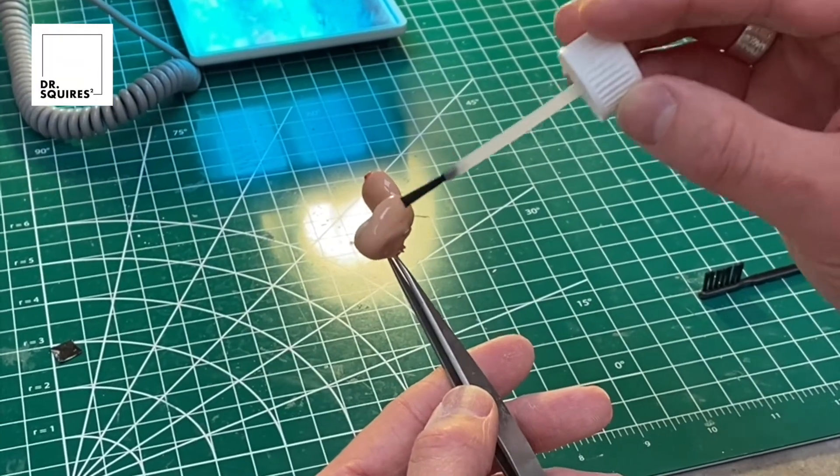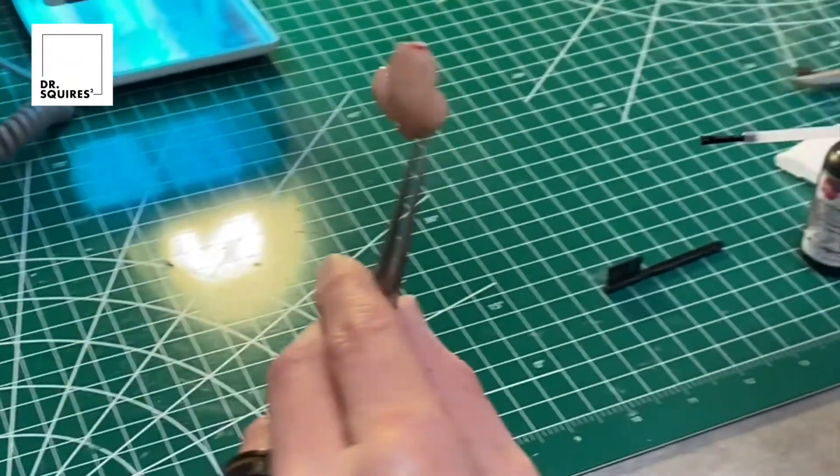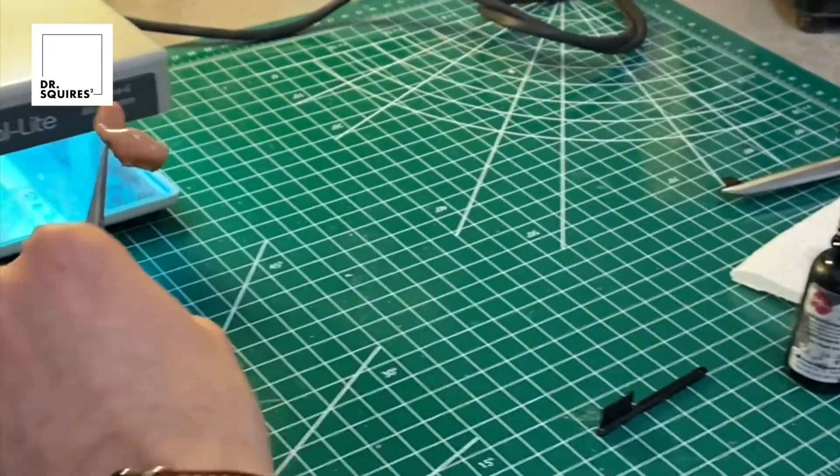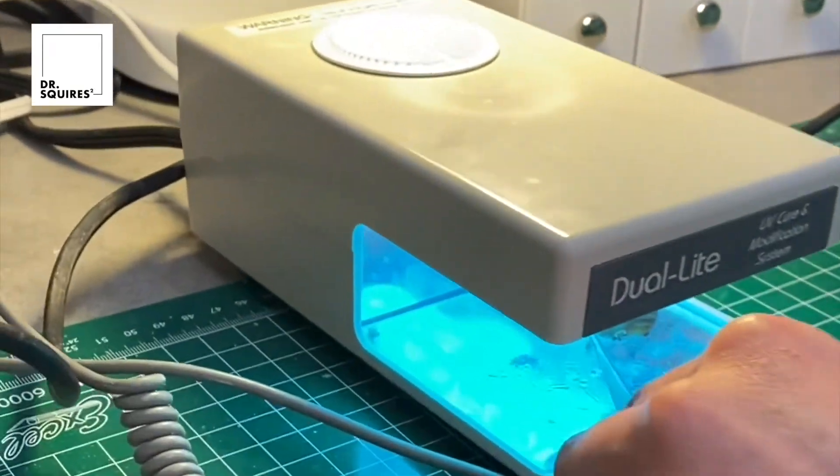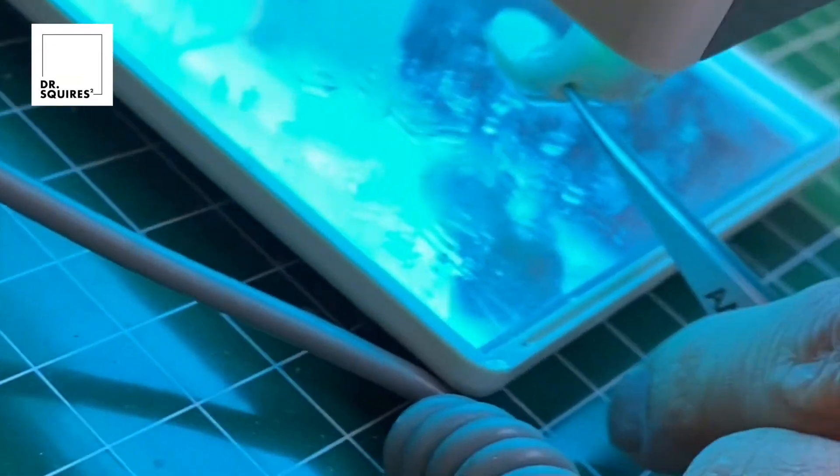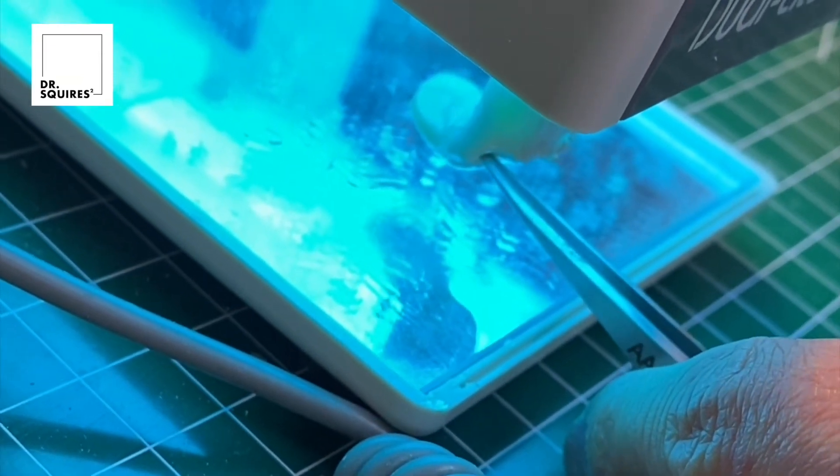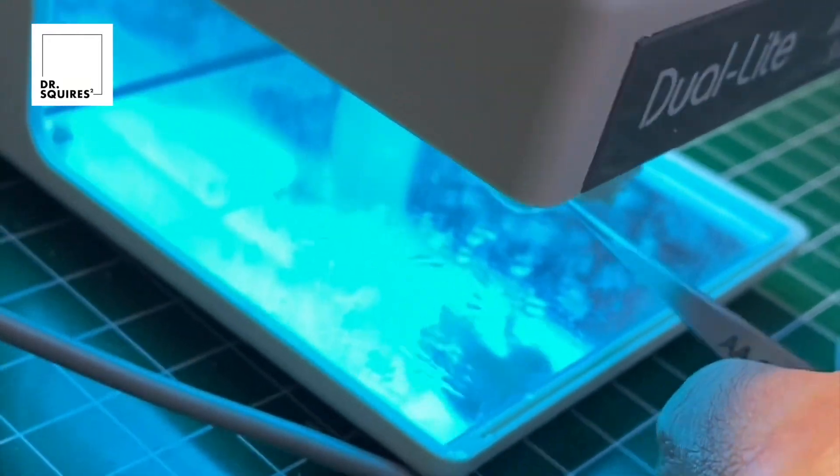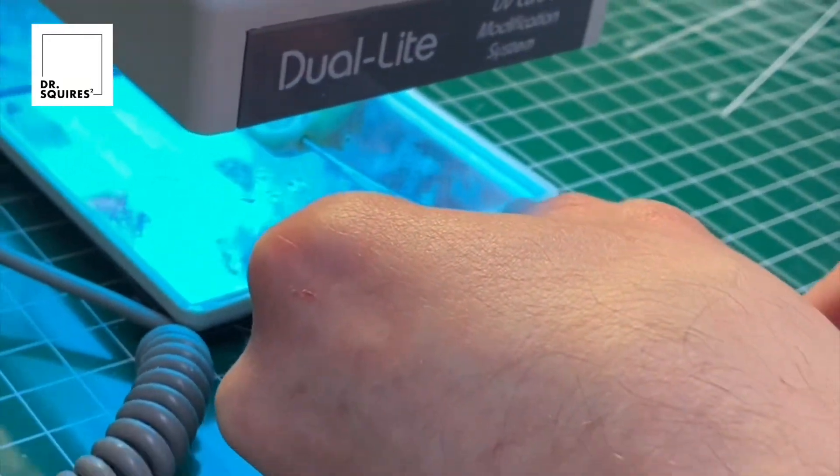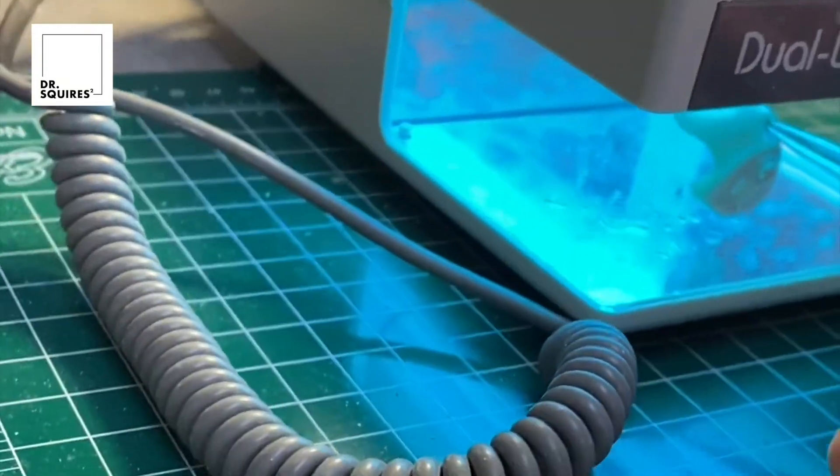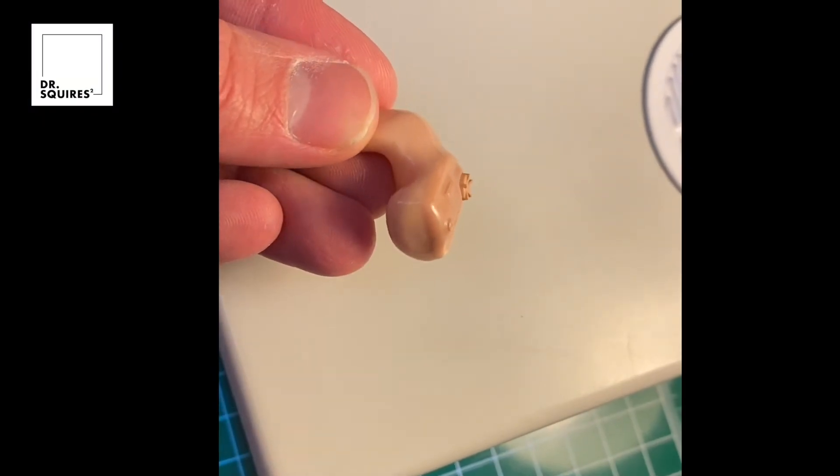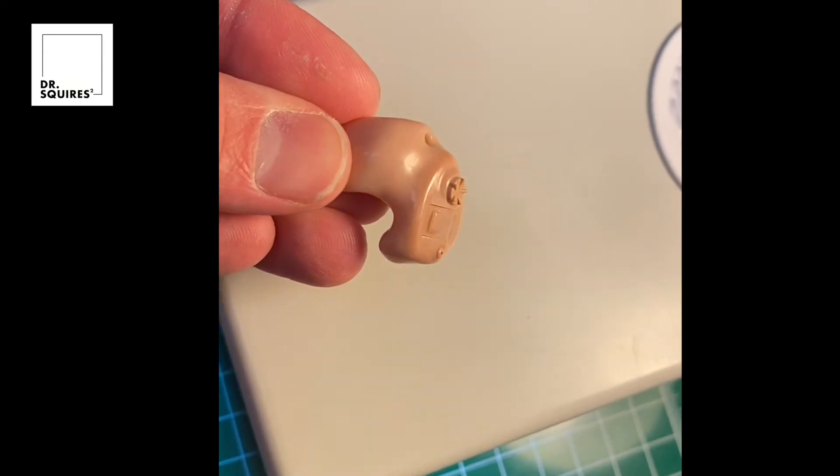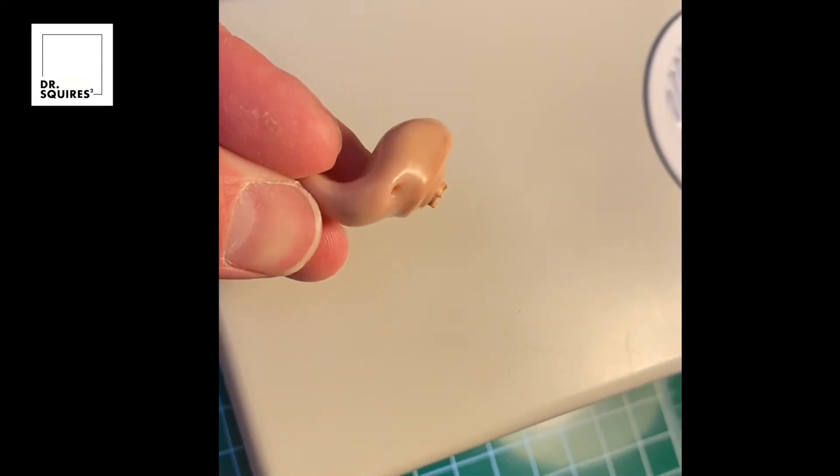Back to real time, got a nice smooth final coat on there. We're going to pop it in the oven for about five minutes. Thanks for sticking in there and watching this process. We enjoyed doing it and hopefully you enjoyed watching and learning a little bit. It's kind of hard to do it with holding the camera with one hand and doing everything with the other hand, but here you can see our final product with a hearing aid that looks like it did when it first came from the manufacturer.